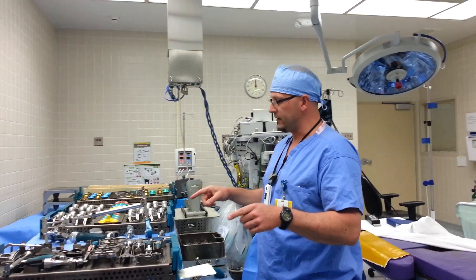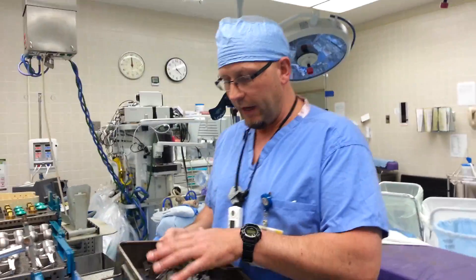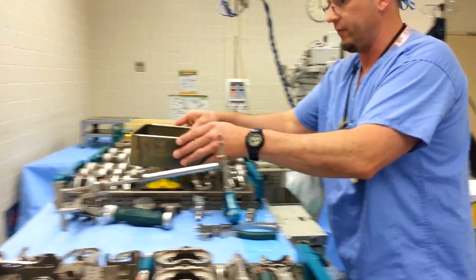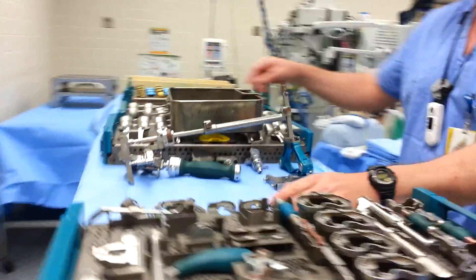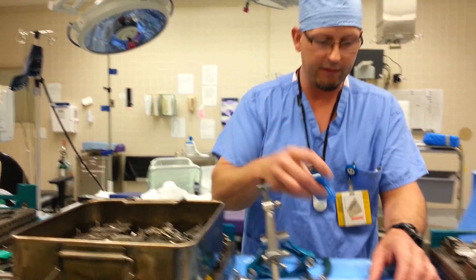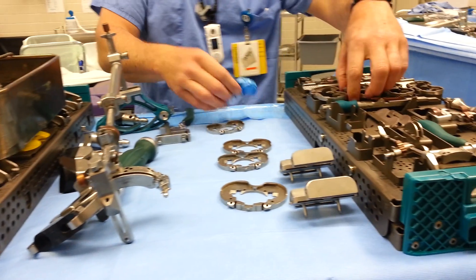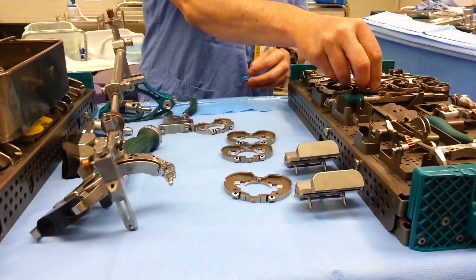Back with more triathlon knee stuff — the Stryker triathlon system. For cutting blocks, we have things in a flash pan here and also cutting blocks in your trays. We use custom cutting blocks made for the physicians here. The trays have tibial base plates, but we use locking tibial base plates. All that means is that these retain the poly insert when placed in the patient — it doesn't pop out as easily.